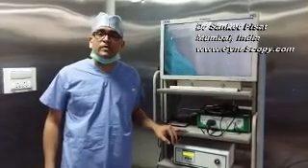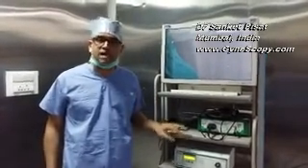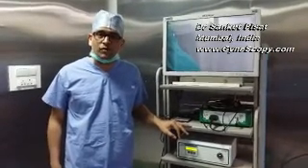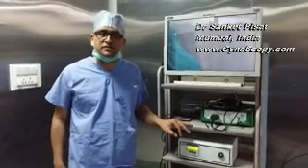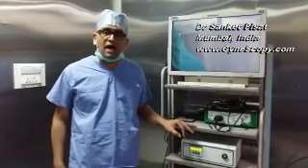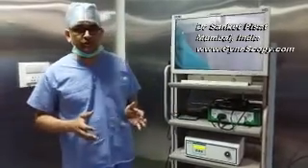Now all of you may be operating at your own center or at various other centers for doing a Gynaec endoscopy. But regardless of where you are going for doing surgery, it is important that you check that the OT is well equipped before you start surgery, in order to avoid unnecessary delays and complications after starting the procedure. So what all do you actually check after going into the operation theatre?